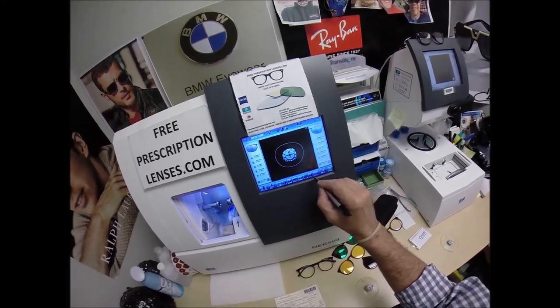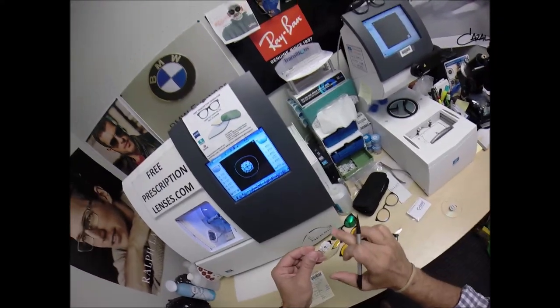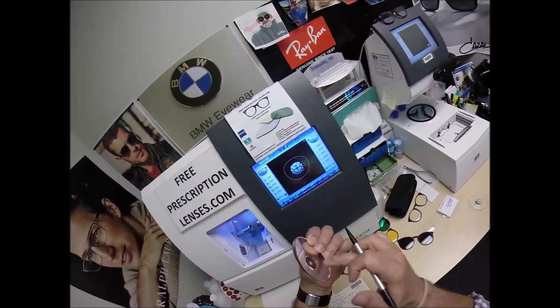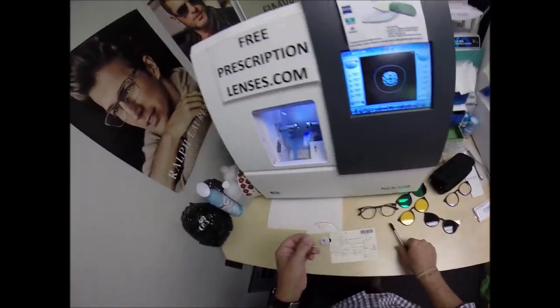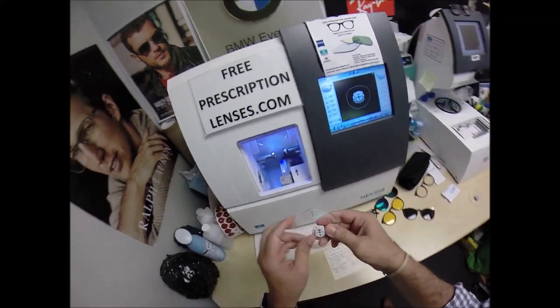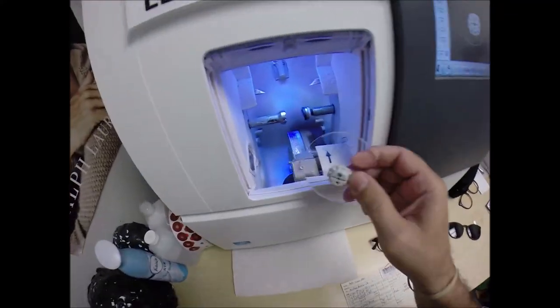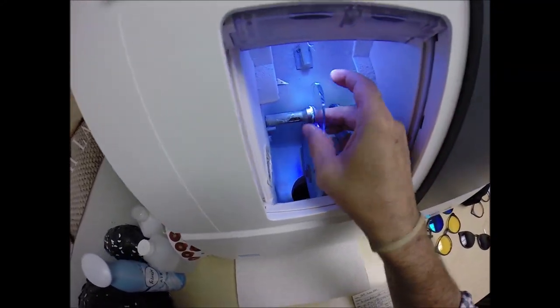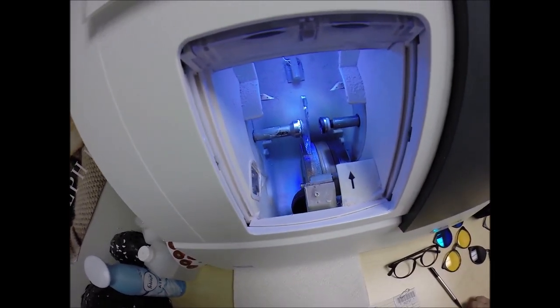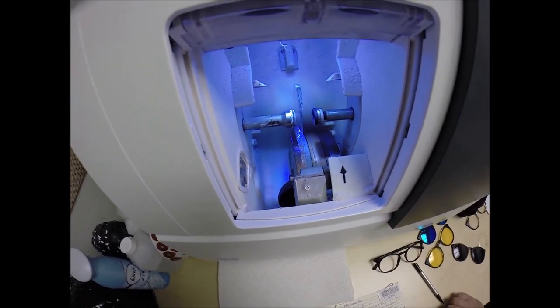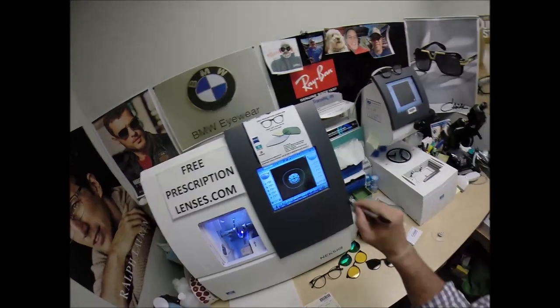I'm not going to polish the edge of the lens because it's not going to be seen. I'm not going to put a safety bevel on the front convex surface of the lens, but I am going to place a safety bevel on the rear concave surface of the lens. Press the sticker on there firmly. Now the magnet is going to do its job a second time. It's going to attach itself to another magnet there in the chuck, or as I like to call it, the Charles, because I just don't know this machine well enough to call it chuck.